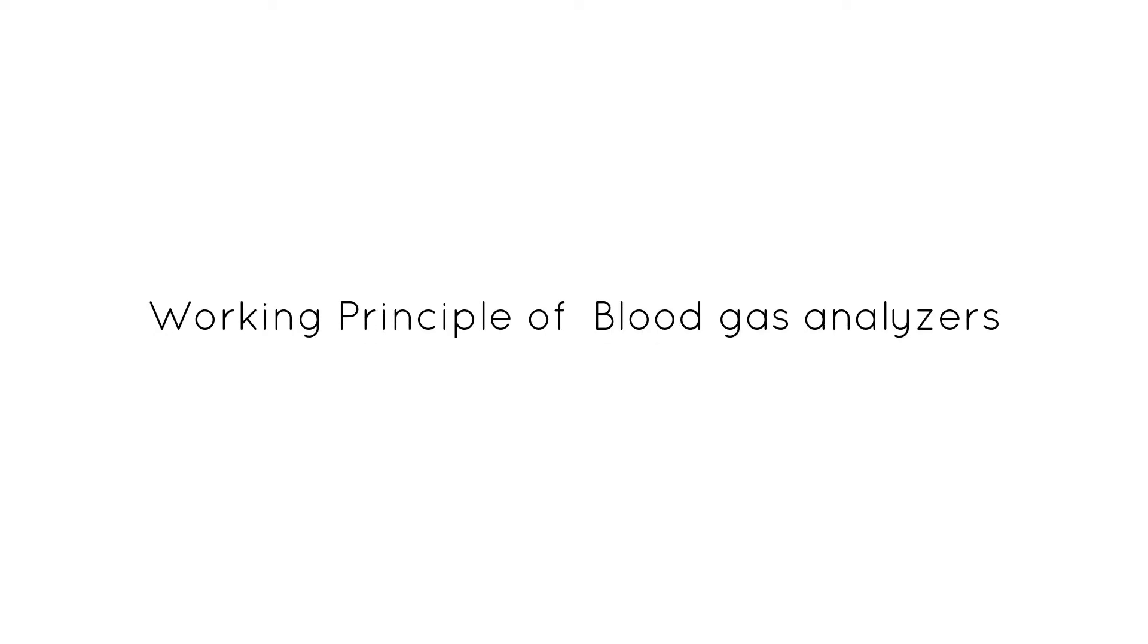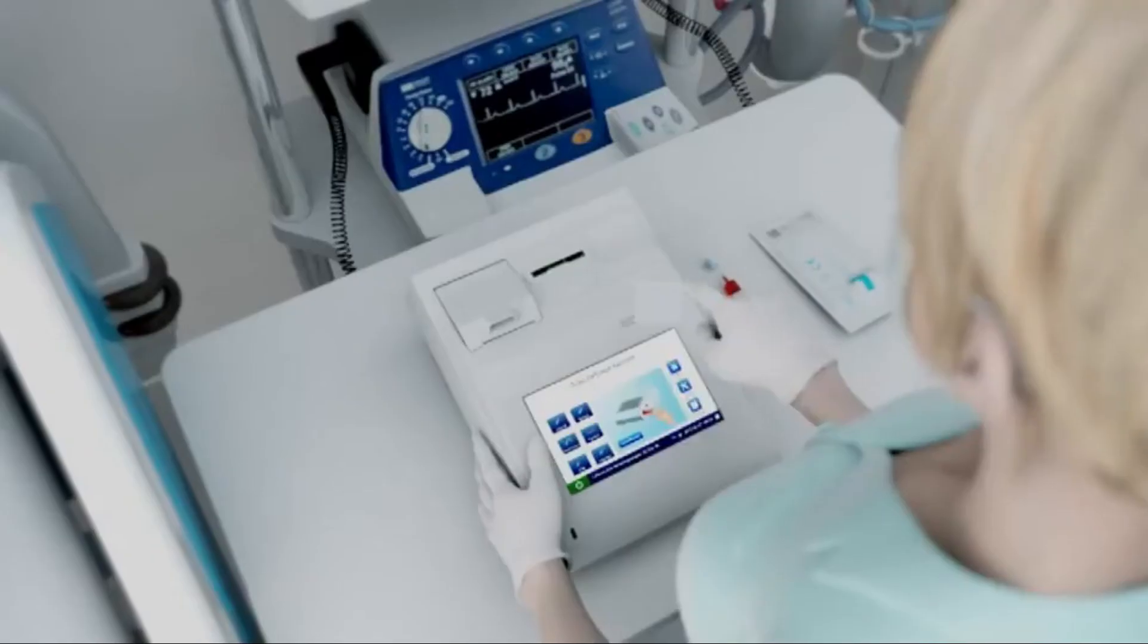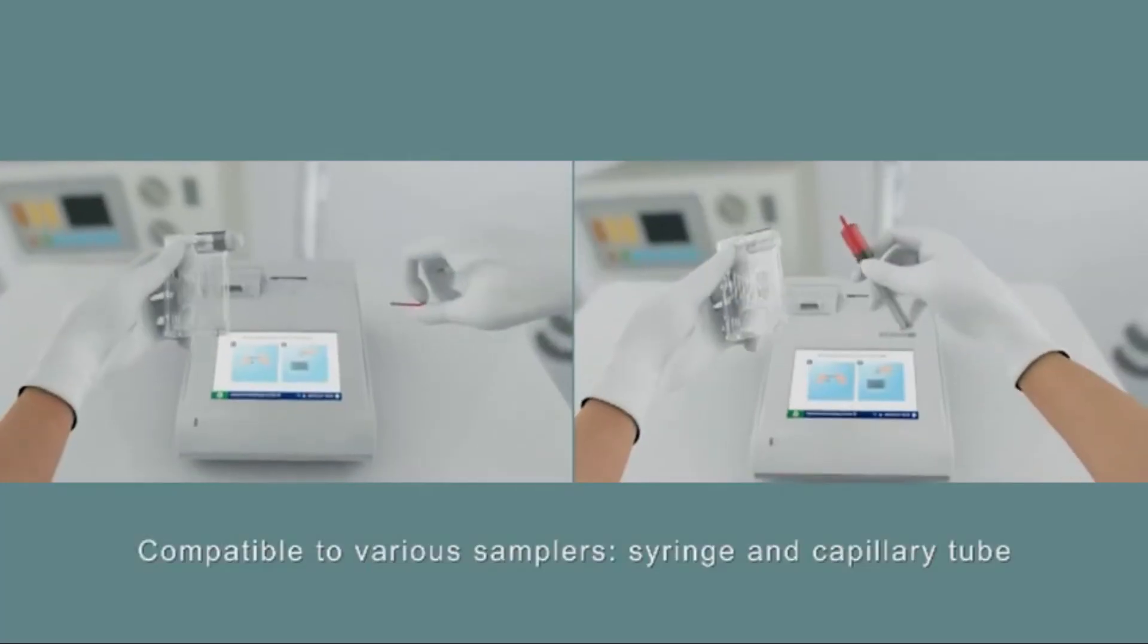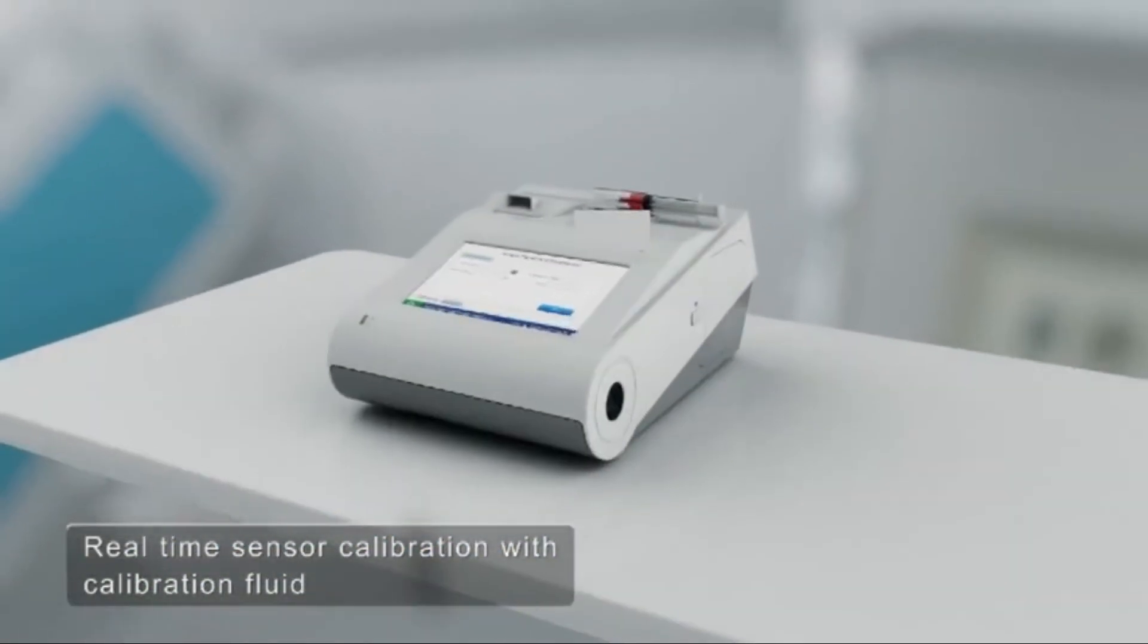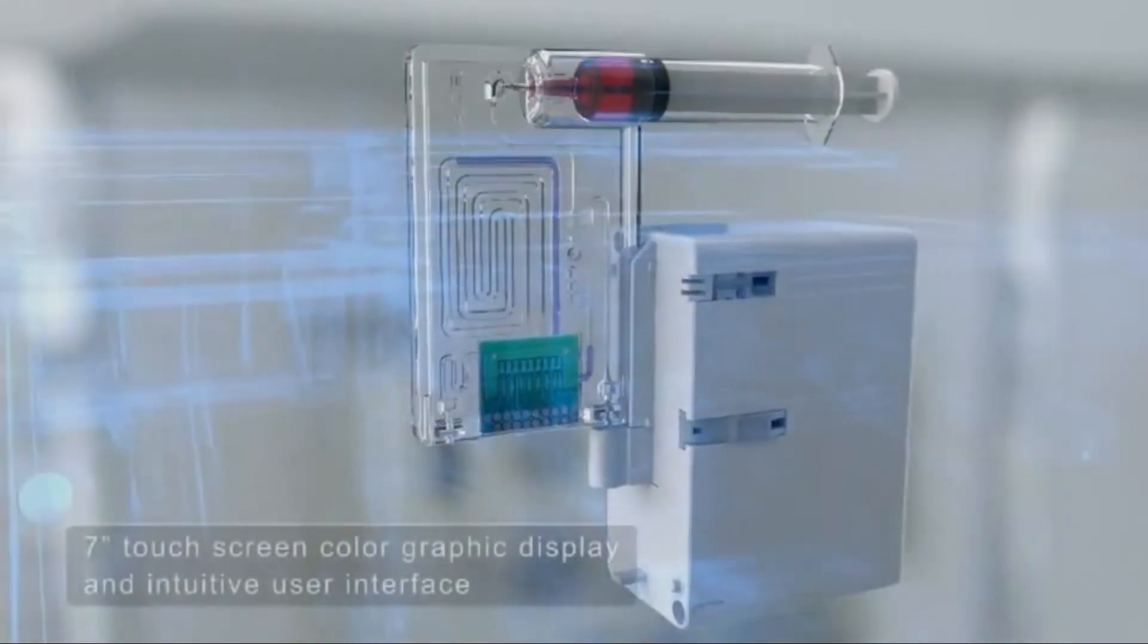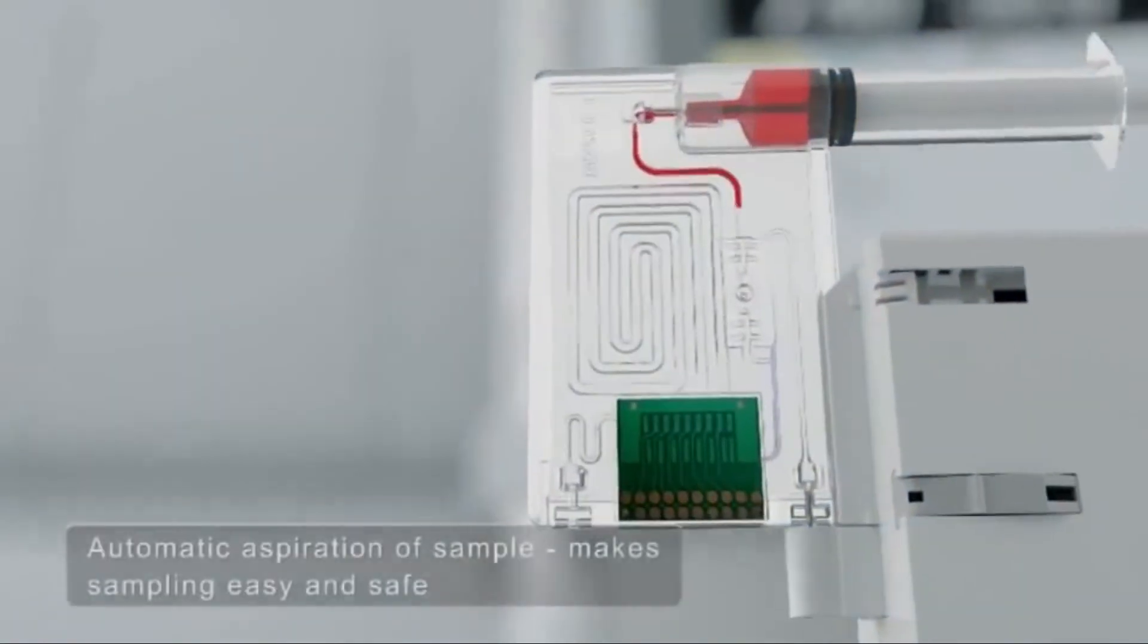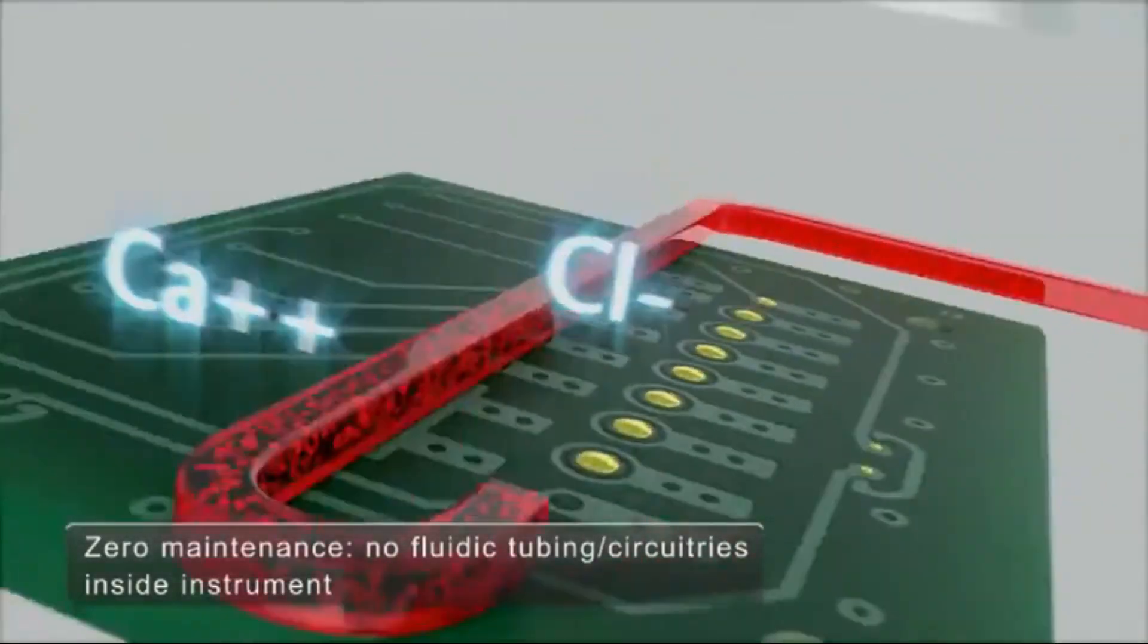Let's learn about the working principle of blood gas analyzers. Blood gas and pH analyzers use electrodes to determine pH, partial pressure of carbon dioxide, and partial pressure of oxygen in the blood. Chemistry analyzers use a dry reagent pad system in which a filter pad impregnated with all reagents required for a particular reaction is placed on a thin plastic strip. Electrolyte analyzers use the ion-selective electrode methodology in which measurements of the ion activity in the solution are made potentiometrically using an external reference electrode and an ISE containing an internal reference electrode.